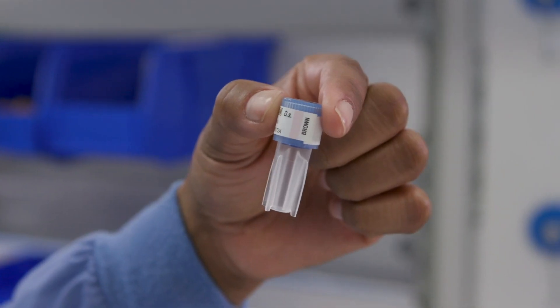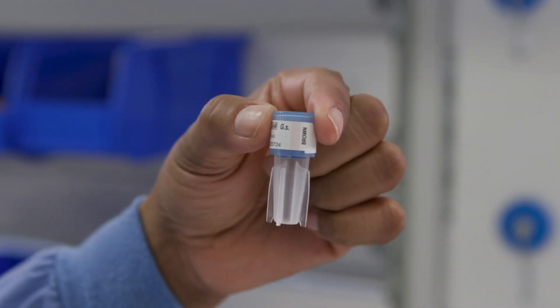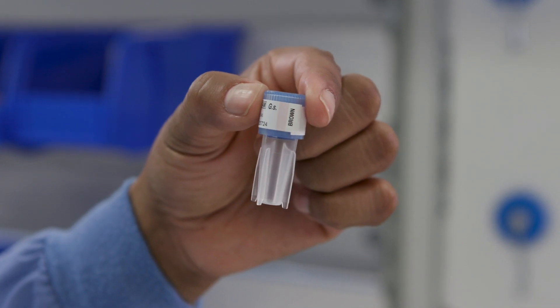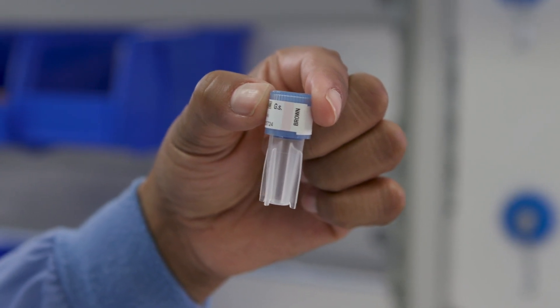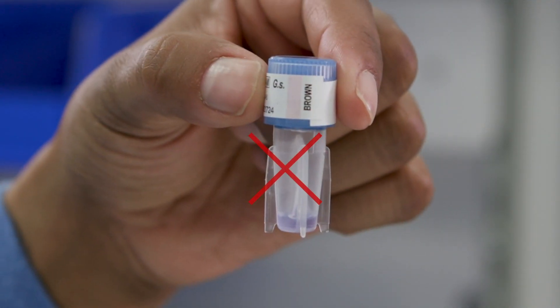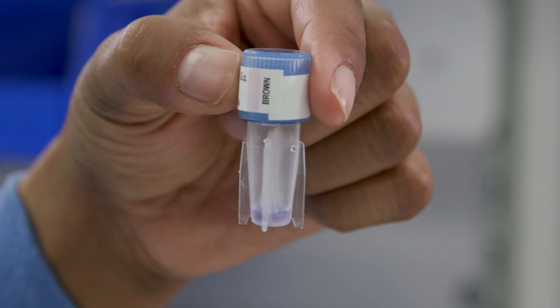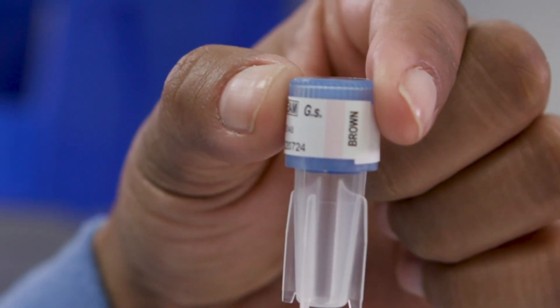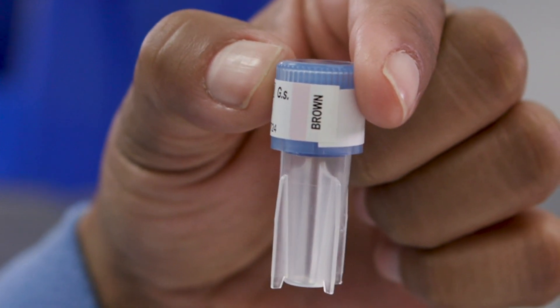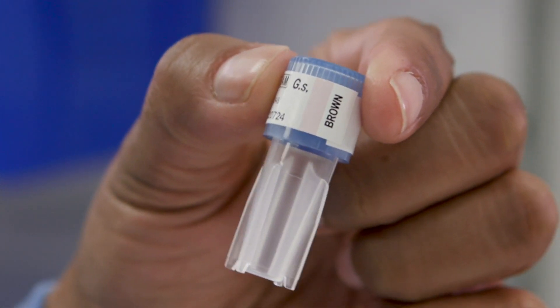Prior to using the BI, inspect the vial to ensure the media-filled cap has not been prematurely activated. No media should be detected in the vial. Inspect the process indicator label on the cap and confirm the indicator color is pink.